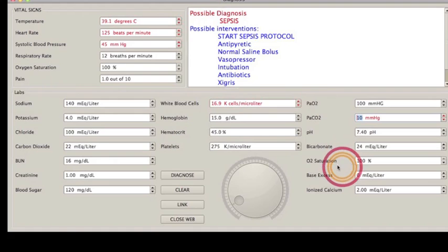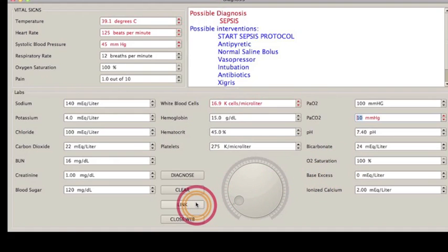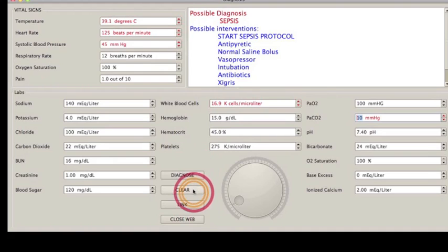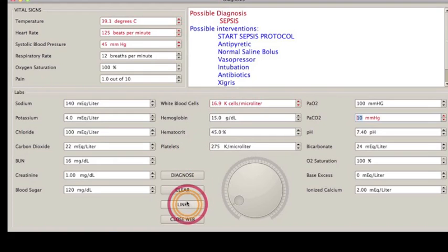So also, if I push this link button here, this is kind of cool about Python and PySide. PySide was the graphical user interface, which is an add-on to Python. And that's what this whole GUI is made of, is PySide.